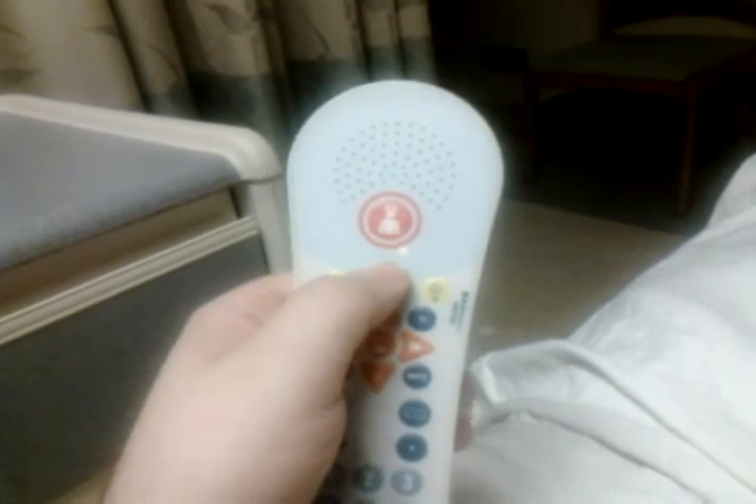Another interesting thing: when you turn the TV off and press the button, it goes to channel two first, then the blue light stays and goes red. I tried turning it back on — it didn't obey the first couple of presses, but now it's obeying. I don't know if it's a matter of cheap electronics or what.